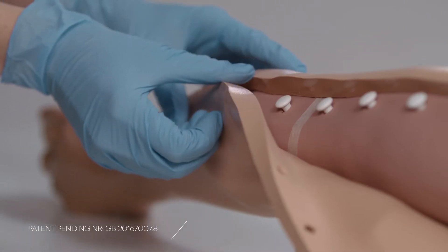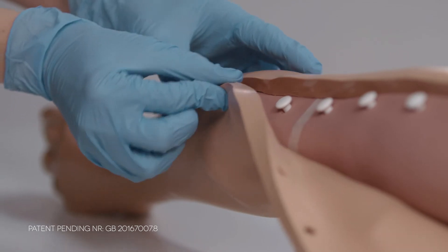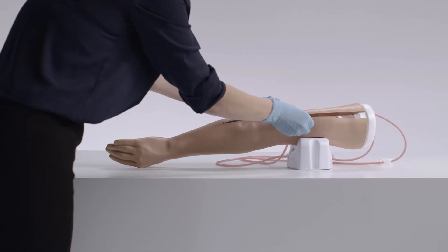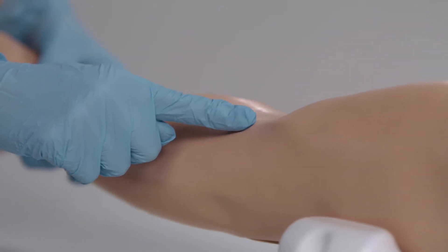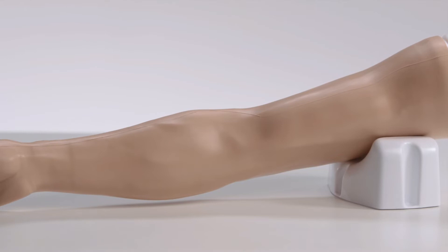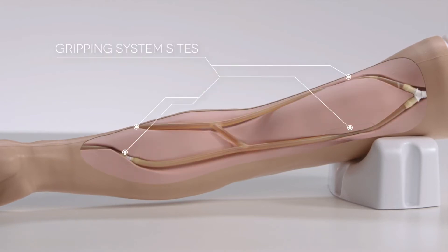The common arm features include the skin locking mechanism allowing easy setup and maintenance, whilst retaining good skin tension for accurate haptics of both the skin and the veins, and a gripping system for accurate vein placement.